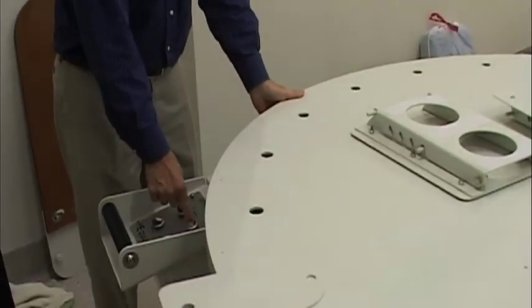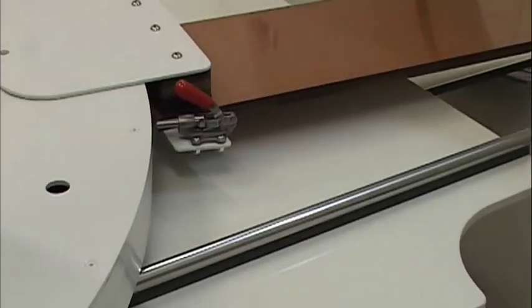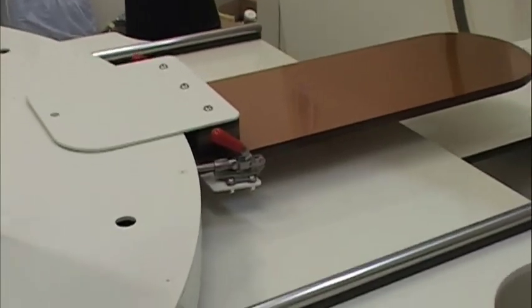Floating of the carousel is a simple matter. The Equus CT has a very easy-to-operate control panel. By simply pressing and holding the float button, the carousel can be rotated in either direction effortlessly. Releasing the button locks the carousel in its desired position.